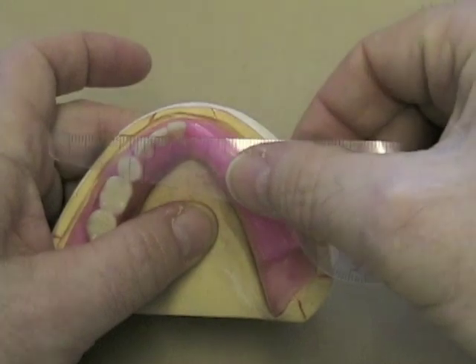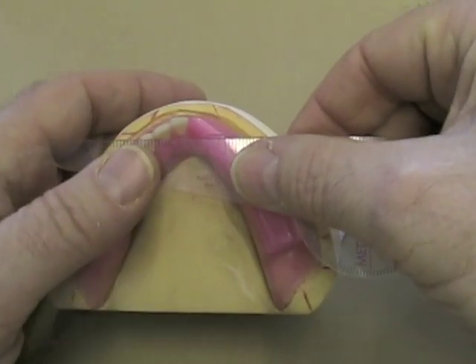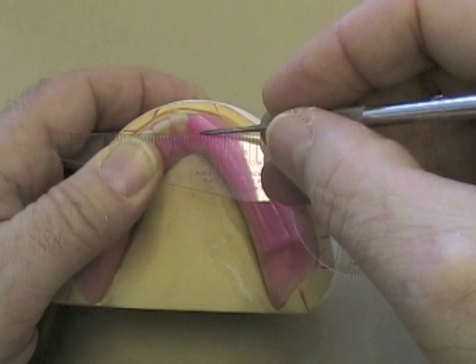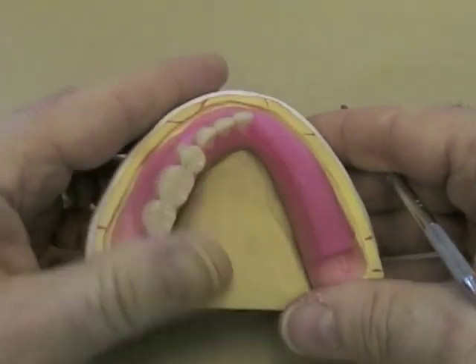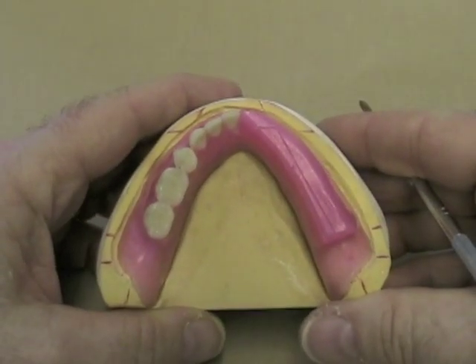The same thing can be done with the anterior reference line. You would simply scribe that into the wax so that it's visible when setting your denture teeth.